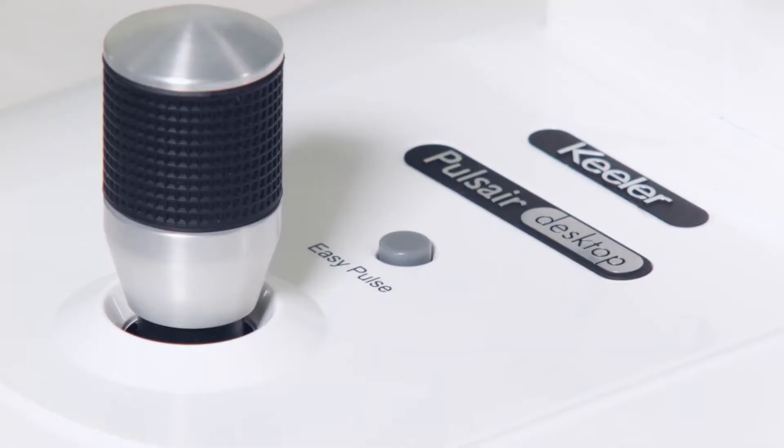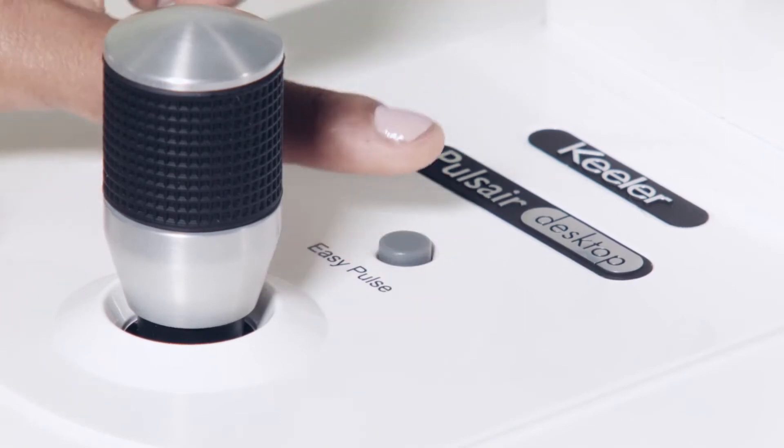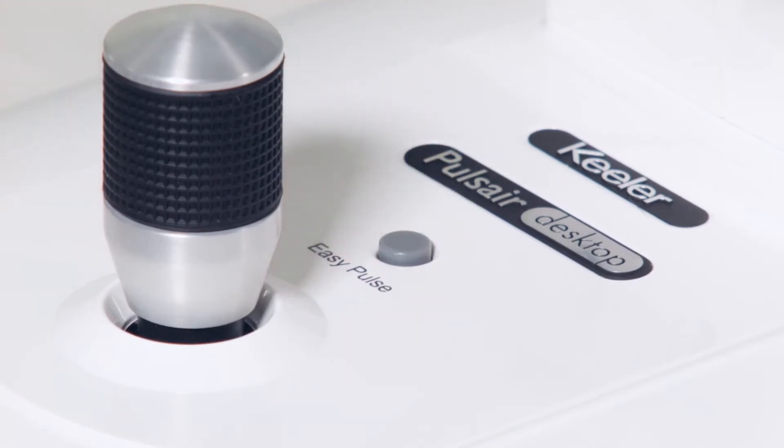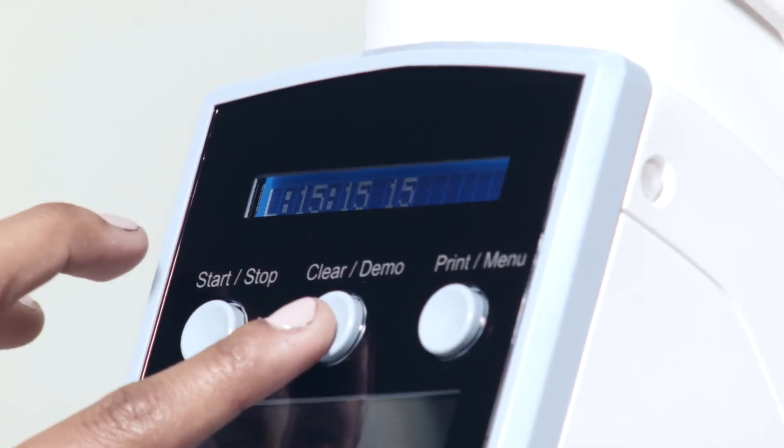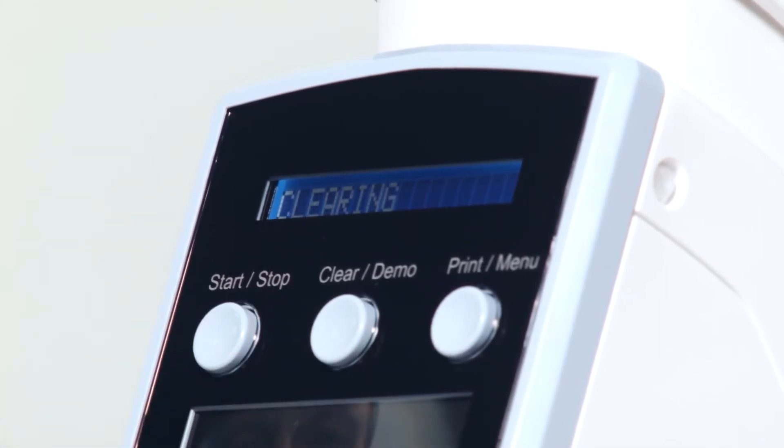Pressing and holding the EasyPulse button for one second activates EasyPulse mode. EasyPulse mode enables the instrument to fire in the event of difficulties in automatic firing, including scarred corneas. Pressing any other button or switching the eye will reset the instrument to normal mode.